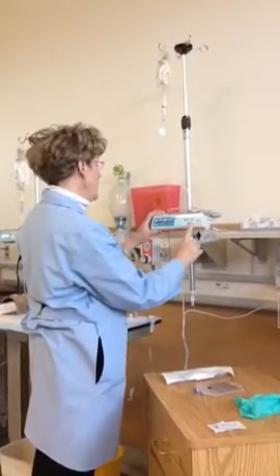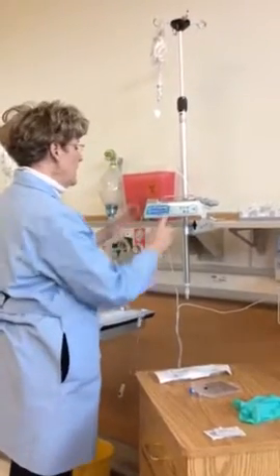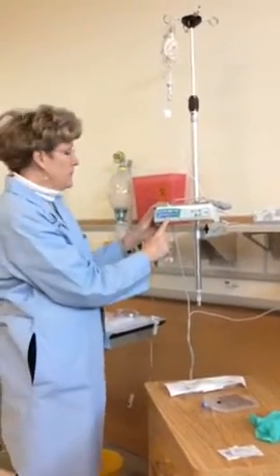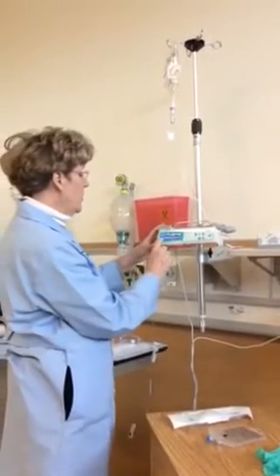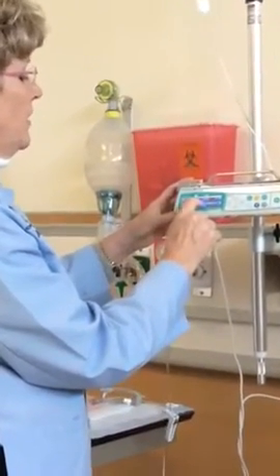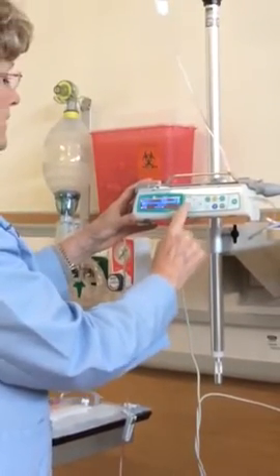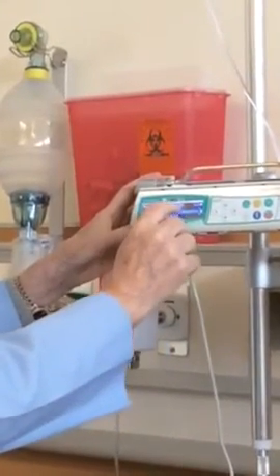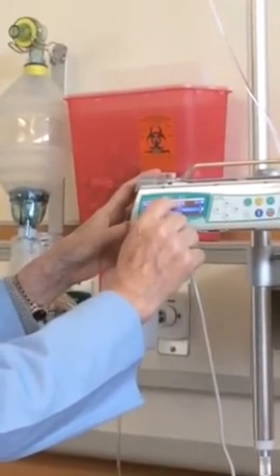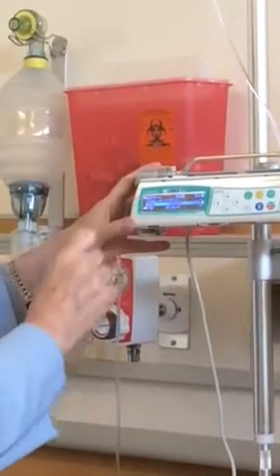So I'm going to wake my pump up. I'm going to cancel my standby. I need to change to primary. Right now, this had a piggyback running, so it says change to PRIM, primary. I'm going to arrow up and left arrow over. For my primary, you'll see a little whited out block show up at the top that says you're going to be programming your primary line.